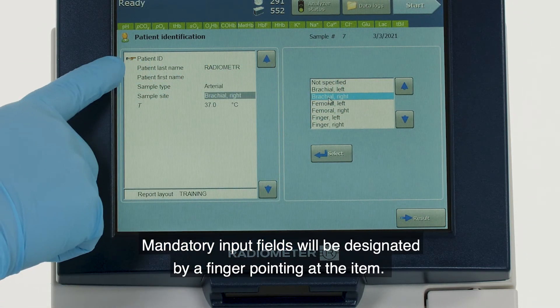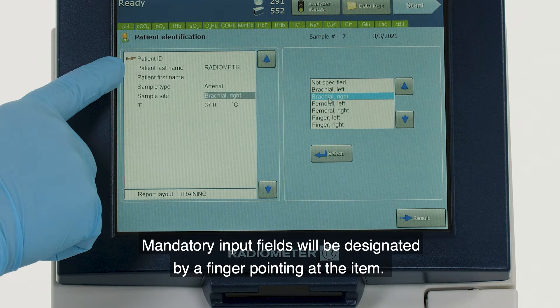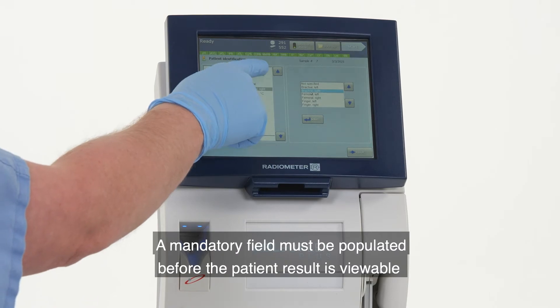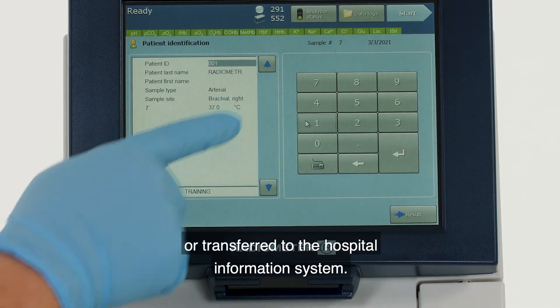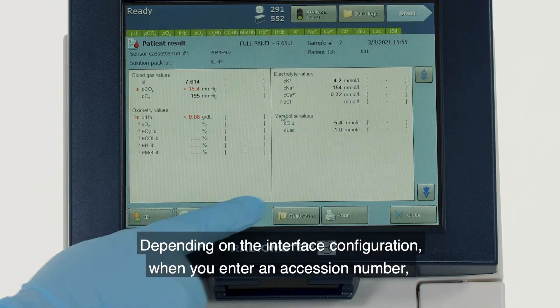Mandatory input fields will be designated by a finger pointing at the item. A mandatory field must be populated before the patient result is viewable or transferred to the hospital information system.